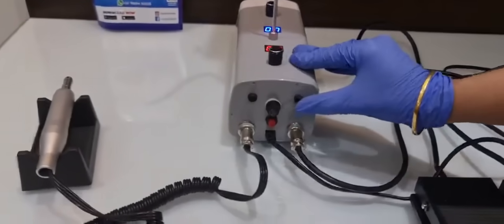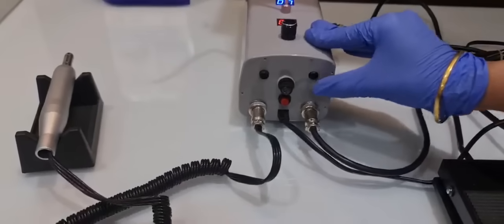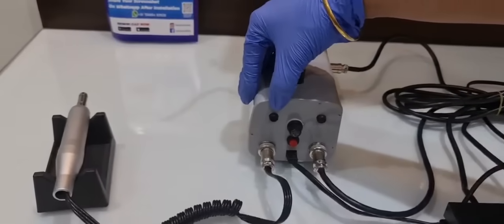This is the button which is used for the control of the motor. If you press this, the motor will start functioning.